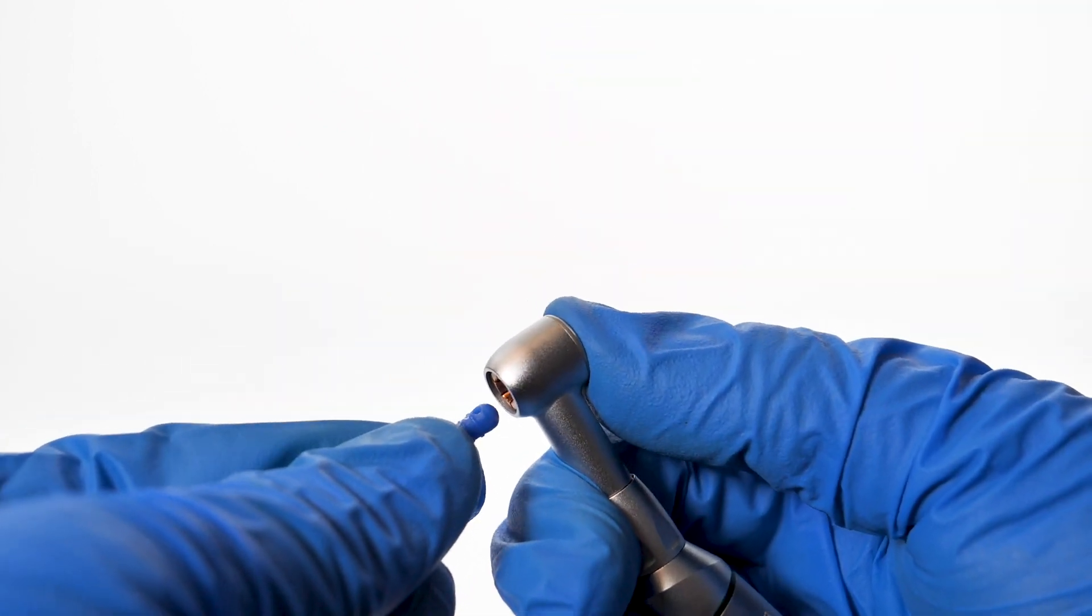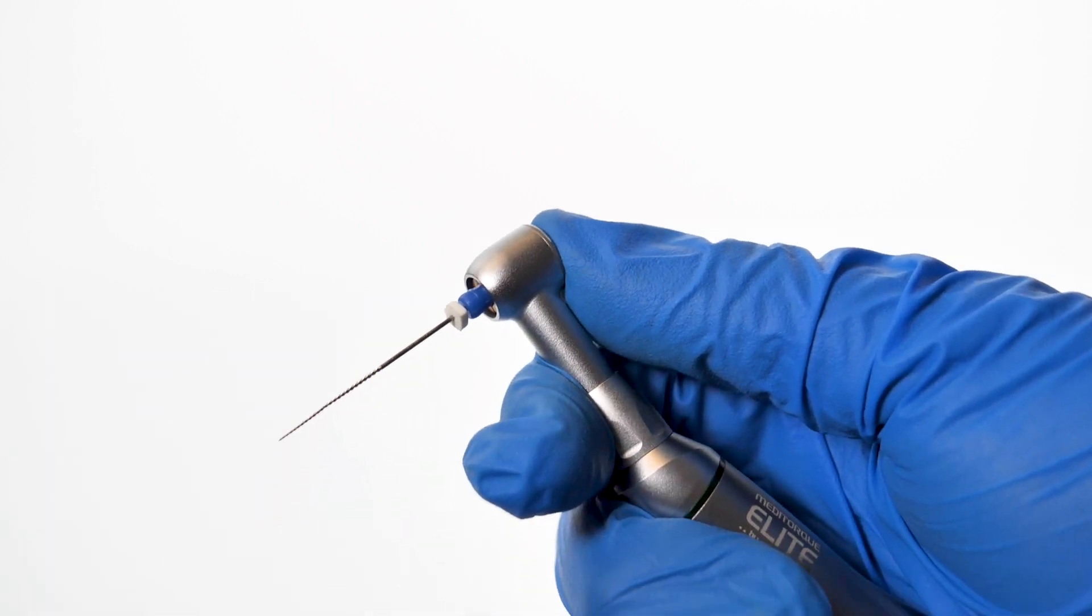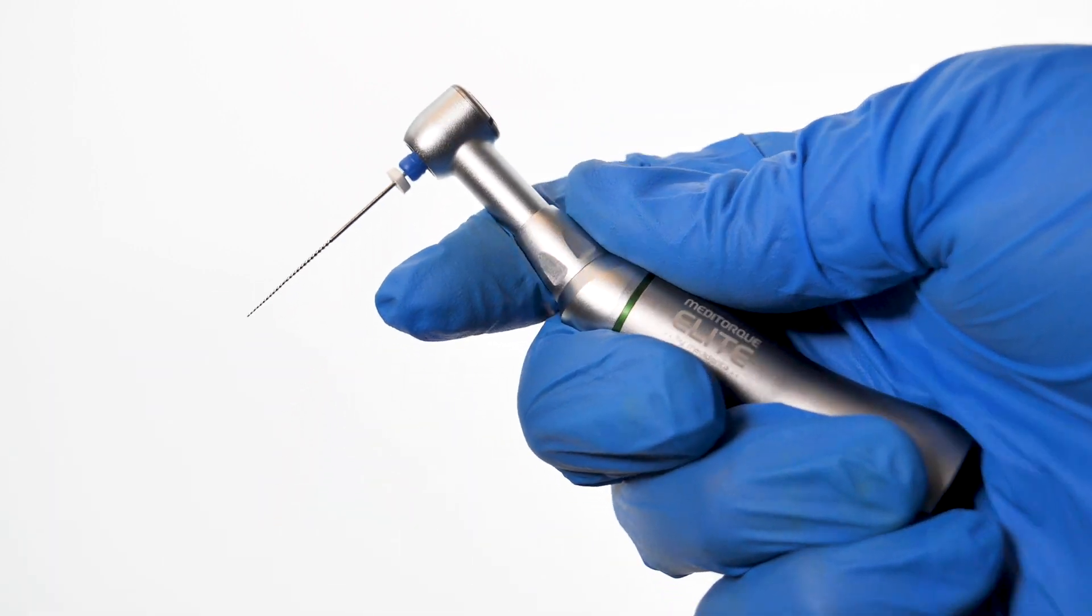The push-button head allows you to easily insert and remove your choice of hand files.